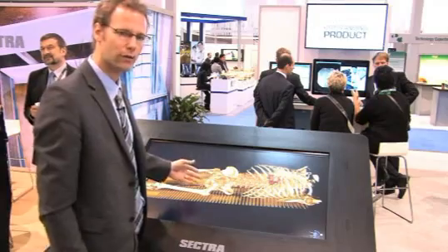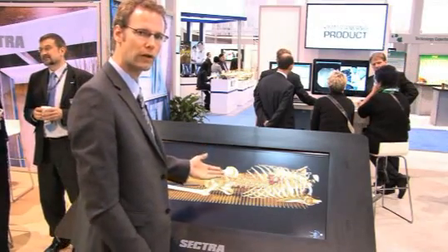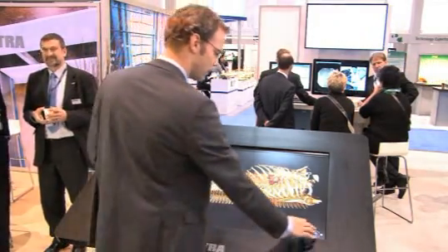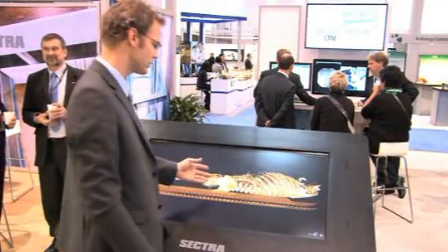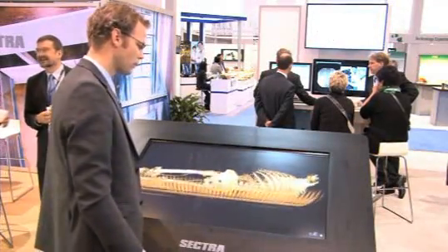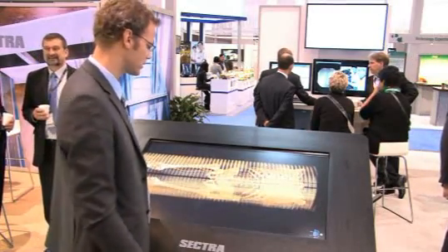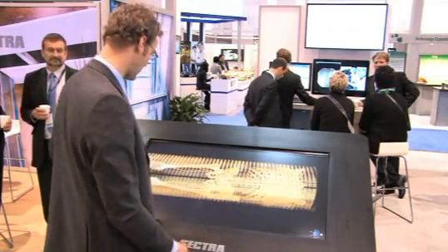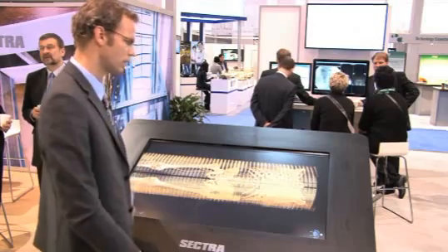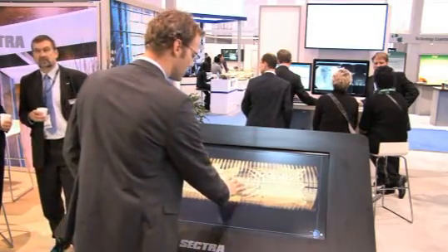First of all, the bed is hindering my view, so I will use our clip plane tool to remove the bed. I can easily change to different positions and put the patient with his back upwards. I add a clip plane and I remove the bed.